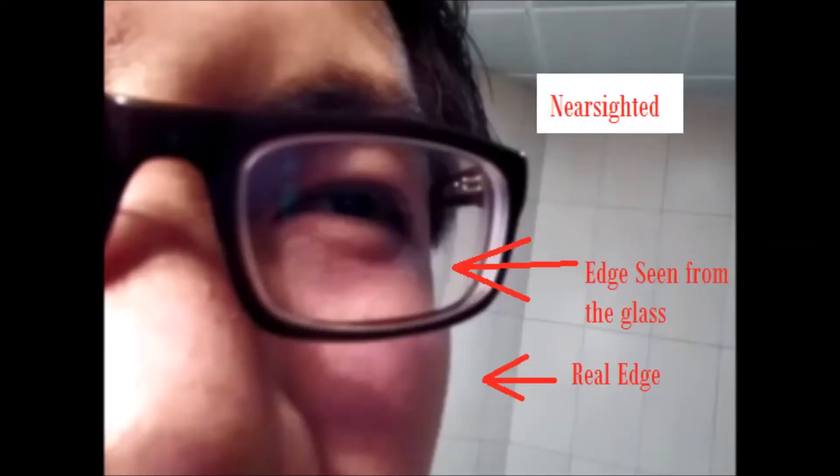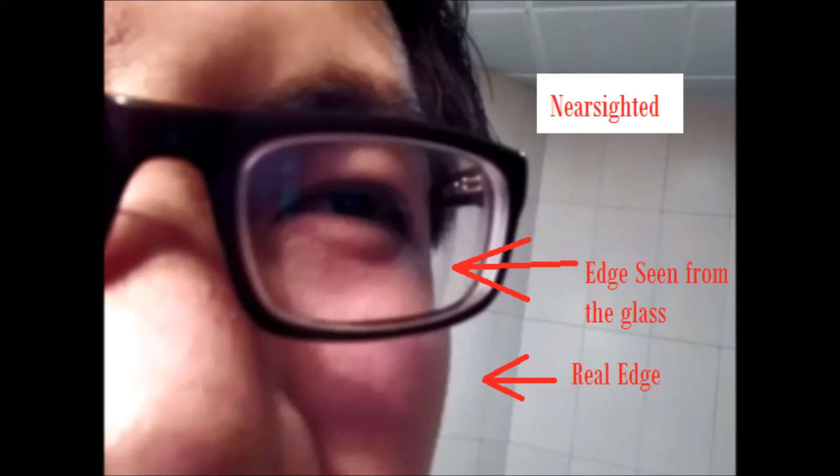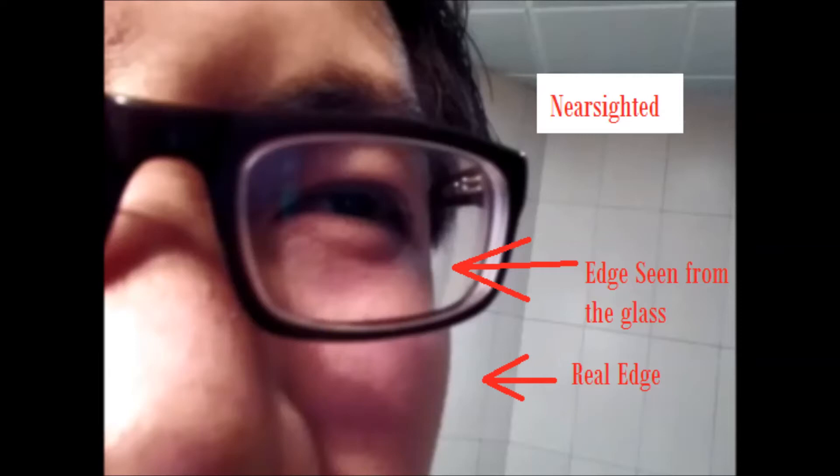As you can see in the picture, a nearsighted glass, or myopic glass, makes the face of the patient smaller. If you compare the normal edge to the edge visible through the glass, you can see that it shrinks.